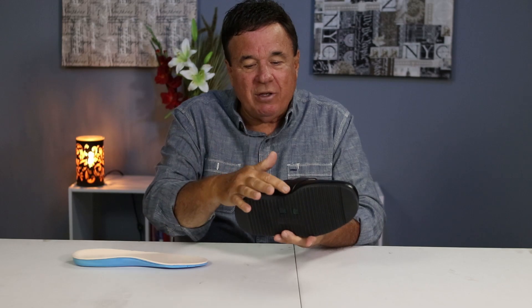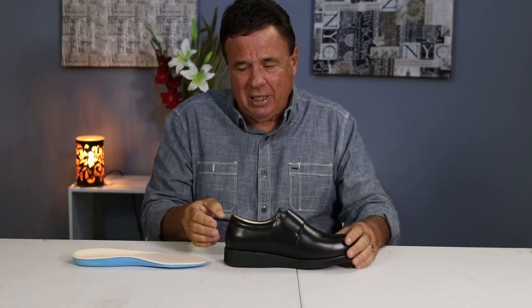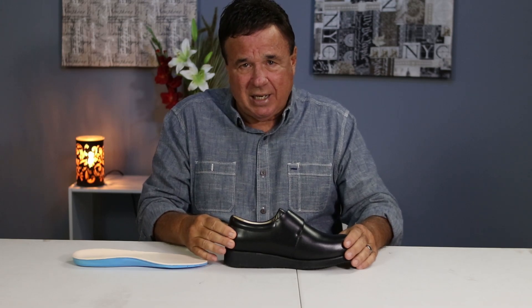It's all leather lined, has the strongest midsection in the shoe business. And everybody will ask me, what's so unique about having the strongest counter and midsection in the shoe business? There's no bilateral movement — none at all — and we keep you in a neutral position.